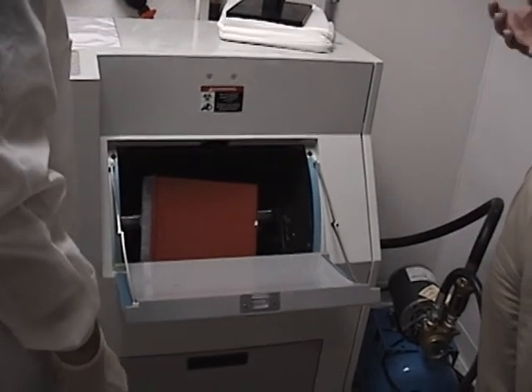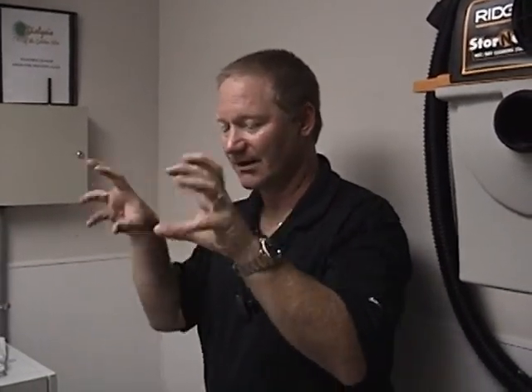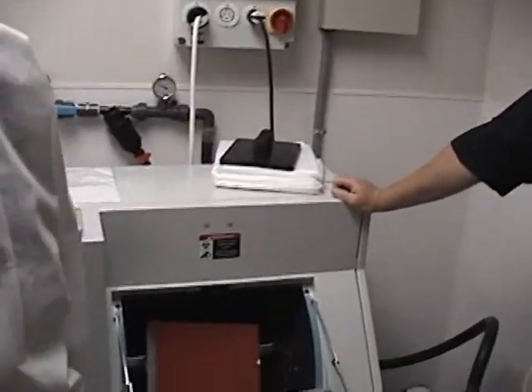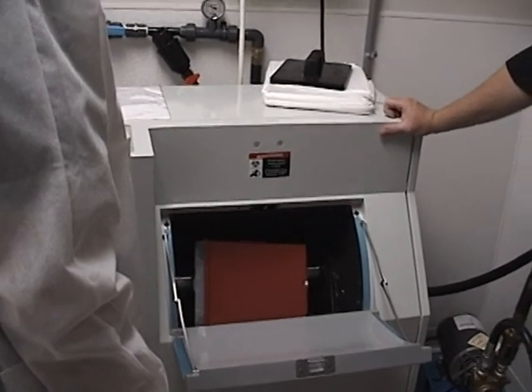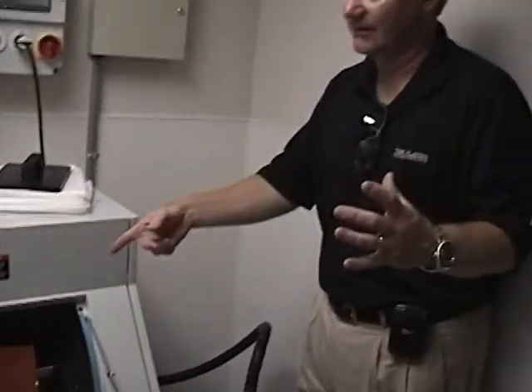Some of the sharps containers, especially the ones made of recycled plastic, tend to become taffy. They'll grab and twist and won't break — they'll turn into taffy almost and wrap around the blade, and then you've got to go in and chip it out. So those are a no-no. Recycling's good but the plastic doesn't break up that well, and it'll leave even larger pieces in the chamber.